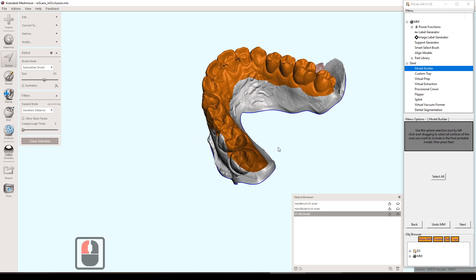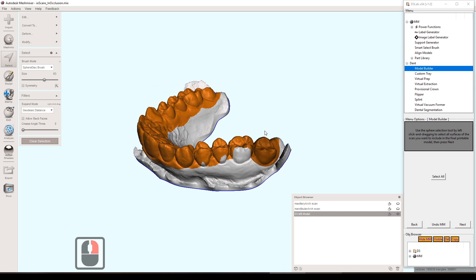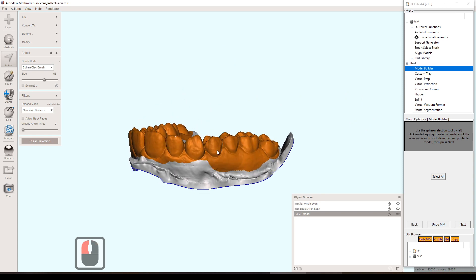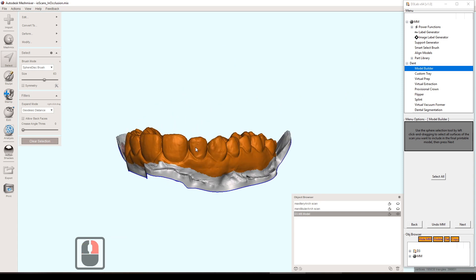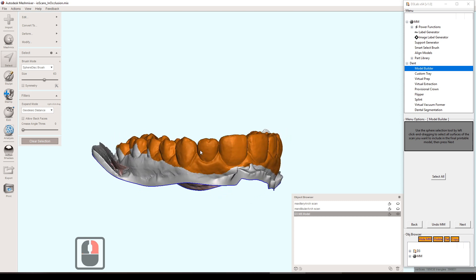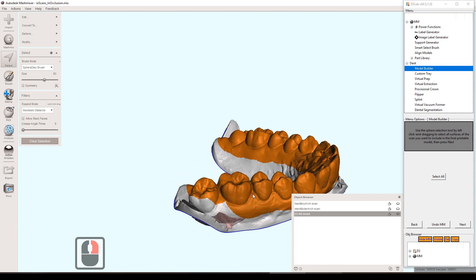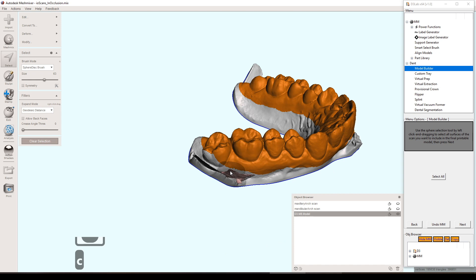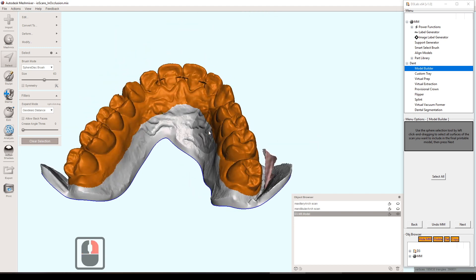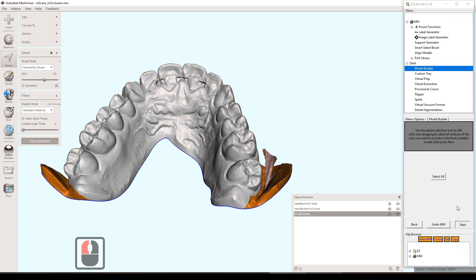It doesn't work all the time. If you don't have a good input selection, it's not trimmed well or some weird flares like on this model right there, I'm not sure if it would work properly. So anyway, that's what that does on the feeling lucky tool there. And what it uses for input parameters, as far as what it's going to be based off of, it's the last settings that you used when you did the manual model building. So whatever you did there, the hollow, whatever the thickness was, whatever the height was, it'll just save and use those parameters from the last one. So if you want to change that, you just do another manual model build with new parameters. And then the next time you do feeling lucky, it will use those.